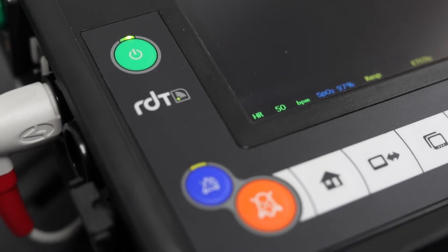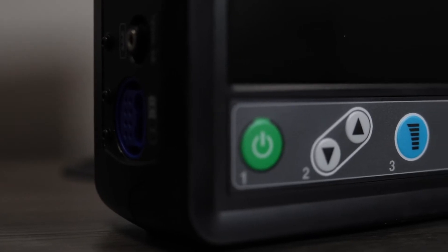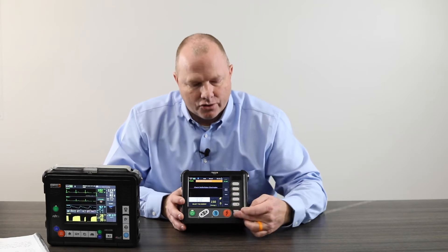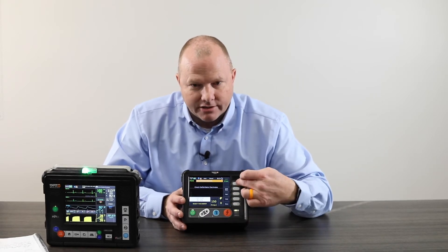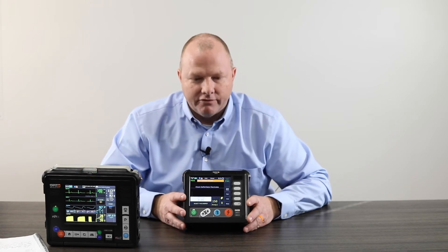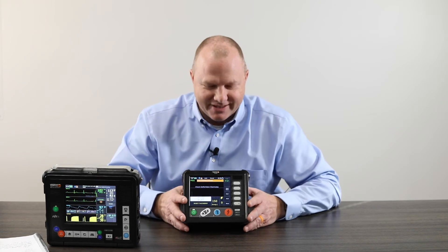There's nothing on the screen because I don't have it hooked up to a simulator. The LS does have a 5.2 inch color screen; it is not a touchscreen. All of your buttons are manual buttons located around the face of the unit. It is paired to the Pro via Bluetooth, and when they recognize each other or come within range, you will hear an audible and see a visual indication of that.